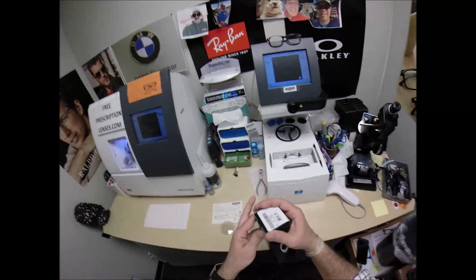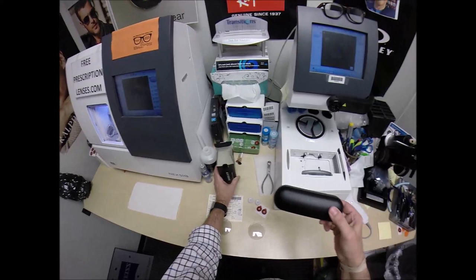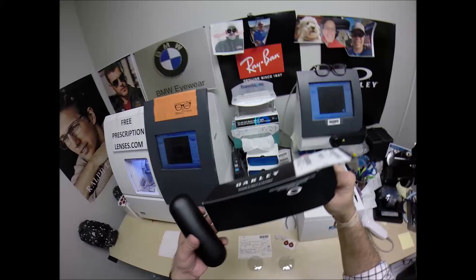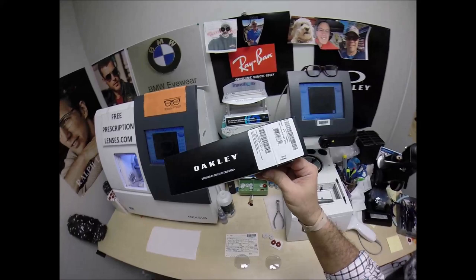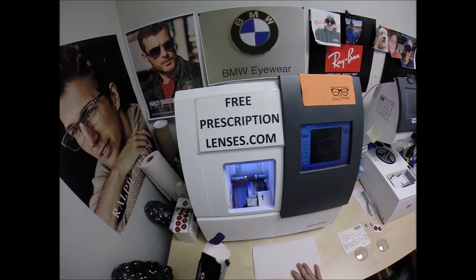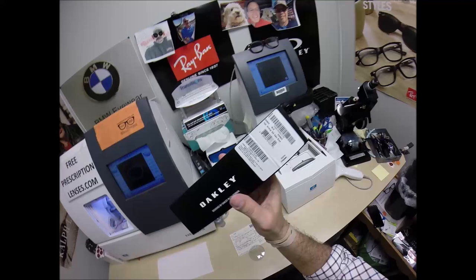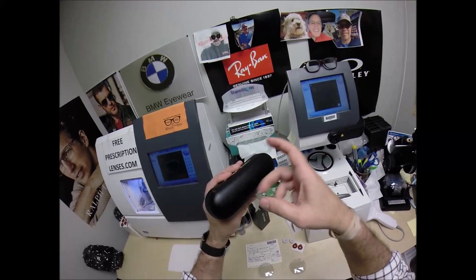Let me take everything out of the original packaging as Oakley sends it to me. By the way, let me start off by saying that yes I am an authorized Oakley dealer but I've been told as a small independent optician I'm not legally allowed to post pictures of the frames with prices on my website so do what Matt did. Go to the website, click the contact me button, there's an email and phone number. Preferably by email let me know what model number, size and color you want. I will check on the price and availability and get back with you.